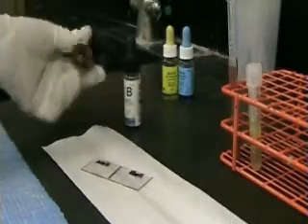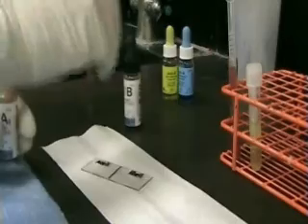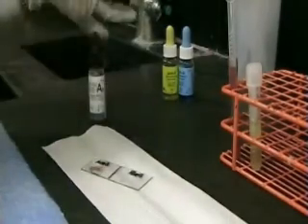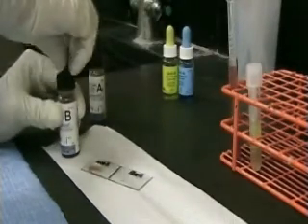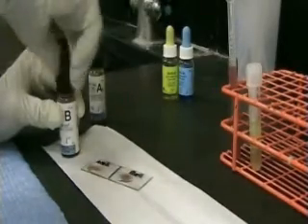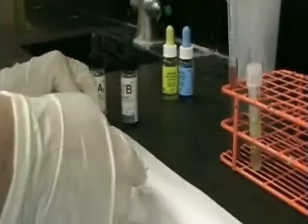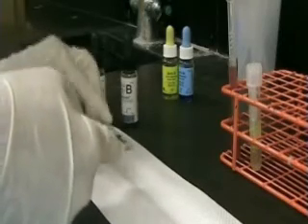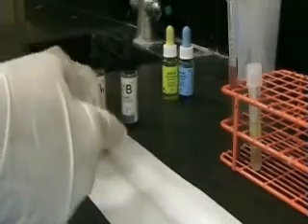Gently mix your reagent red cells to resuspend. Then place 1 drop on the corresponding spot on the slide. Remember, we know what antigens are on the reagent red cells. We are looking for an antibody in the patient plasma. Gently mix your slide, making sure not to run one specimen into the other.